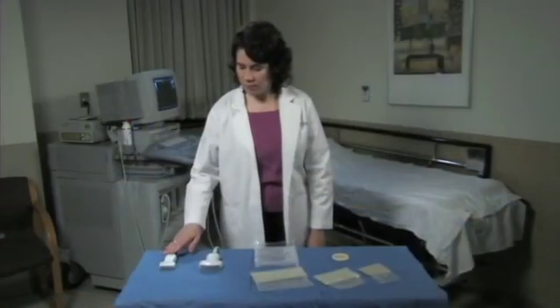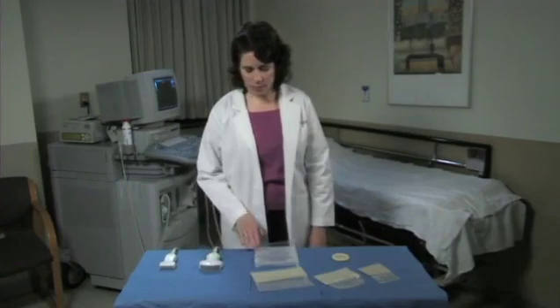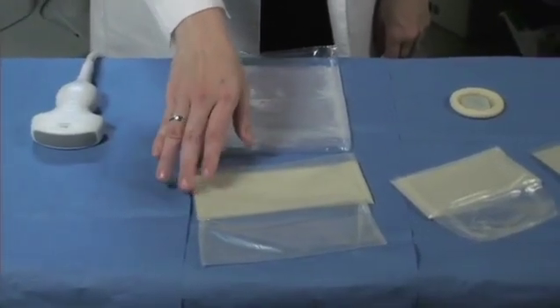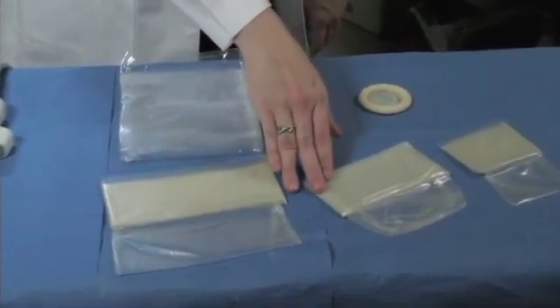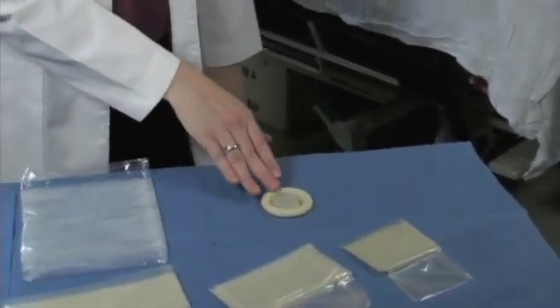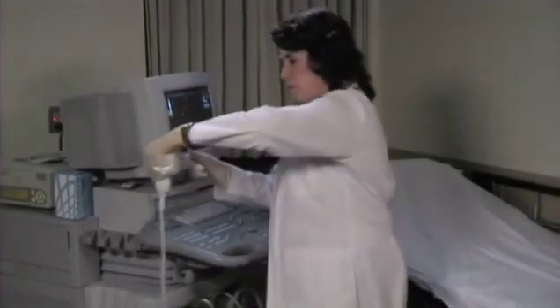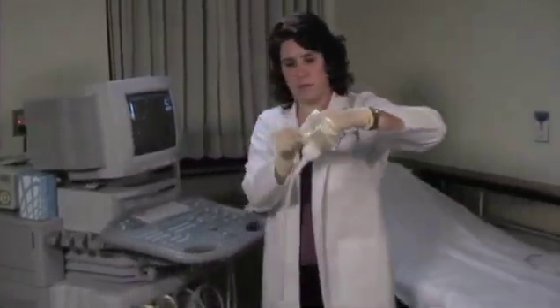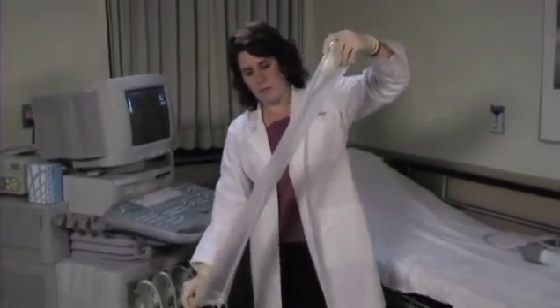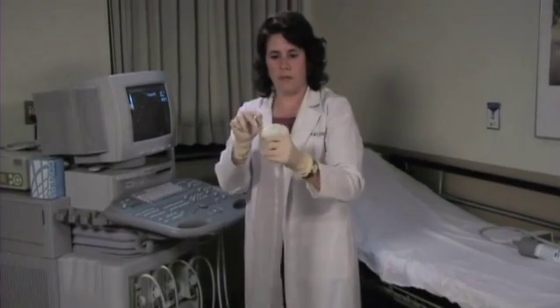General purpose transducer covers are available in many materials, widths, and lengths. Specialized folding techniques of the covers allow for either a single person or dual person approach to application using proper sterile technique. Covers designed for use in a sterile environment usually provide a long, telescoping extension that will cover the cord of the transducer, extending the sterile field.